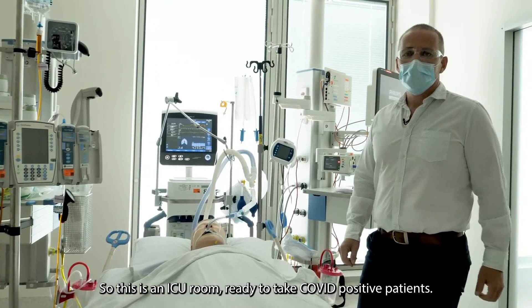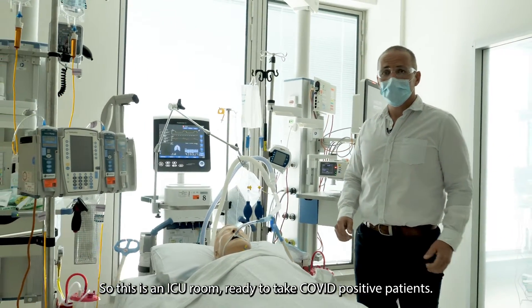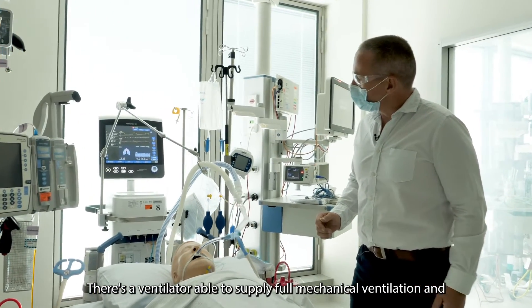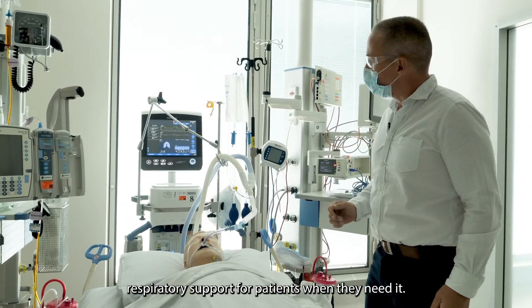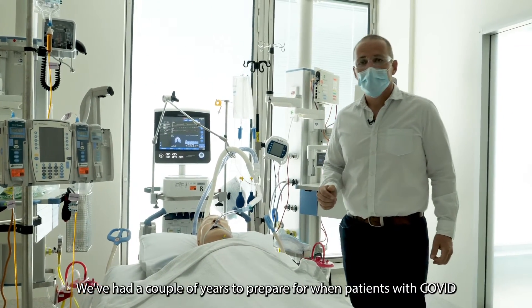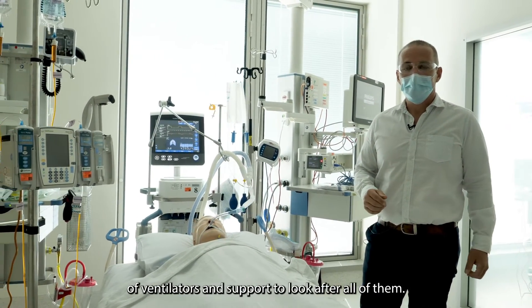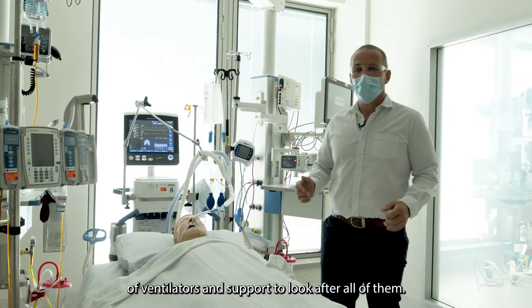This is an ICU room ready to take COVID positive patients. There's a ventilator able to supply full mechanical ventilation and respiratory support for patients when they need it. We've had a couple of years to prepare for when patients with COVID start coming into hospital, and we've got adequate numbers of ventilators and support to look after all of them.